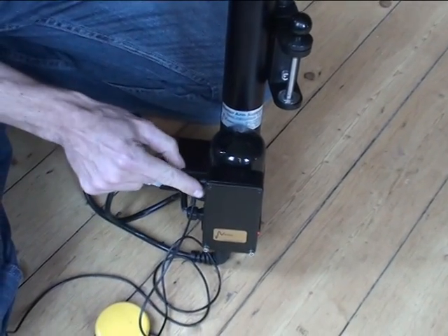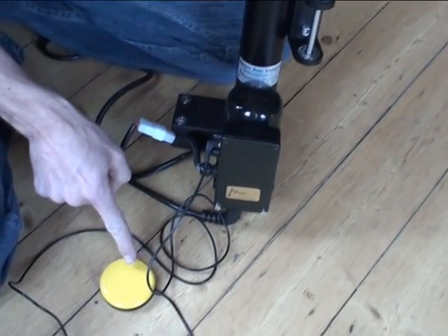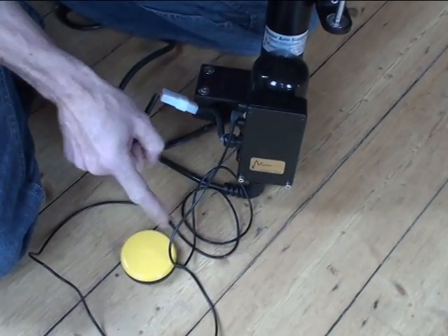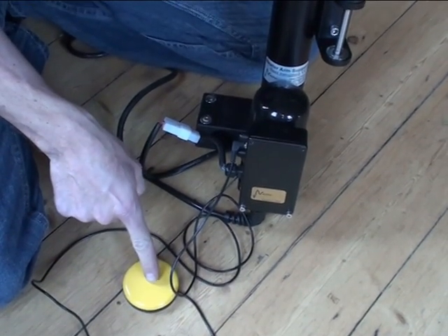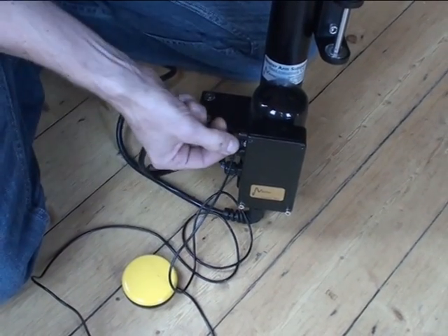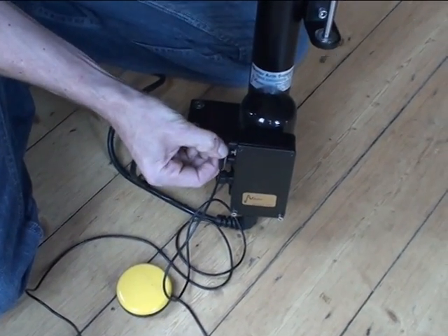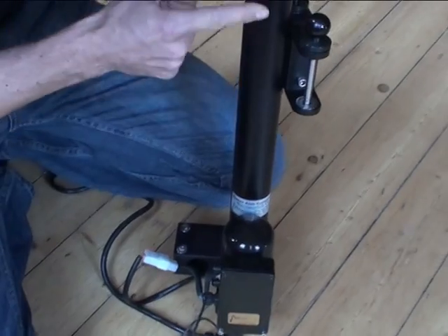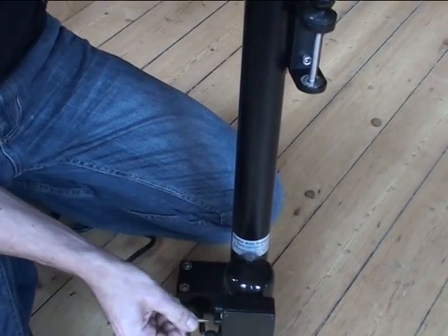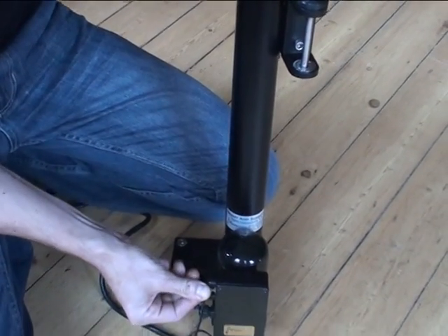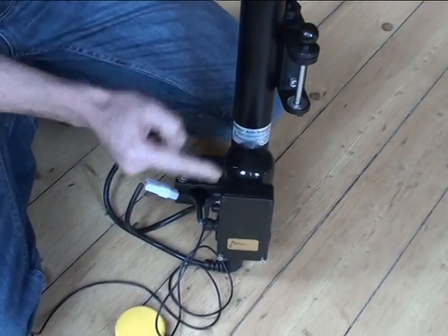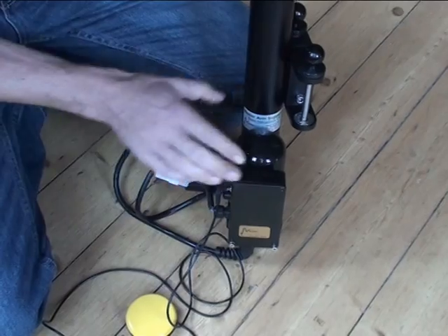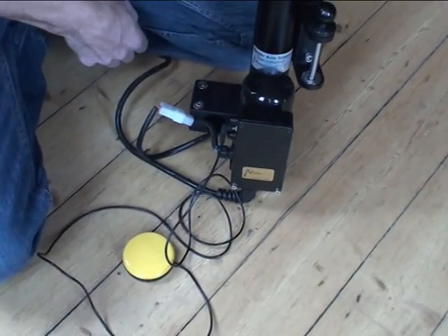This is also useful for testing if the switch is broken or not. If you think your switch is broken and the unit doesn't respond when you press it, try plugging it halfway in and seeing if it moves up and down. If it's still moving up and down you know that the unit is in good working order and the switch is faulty.